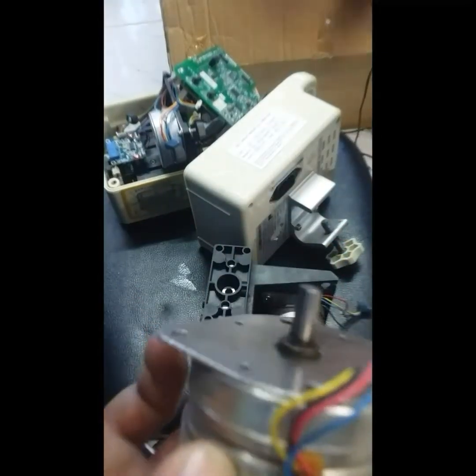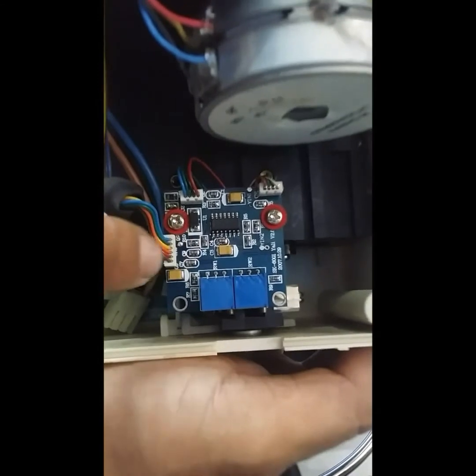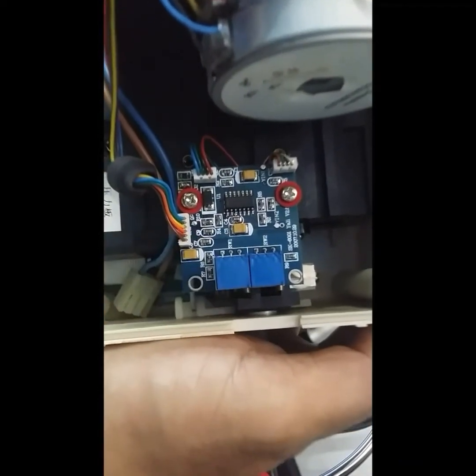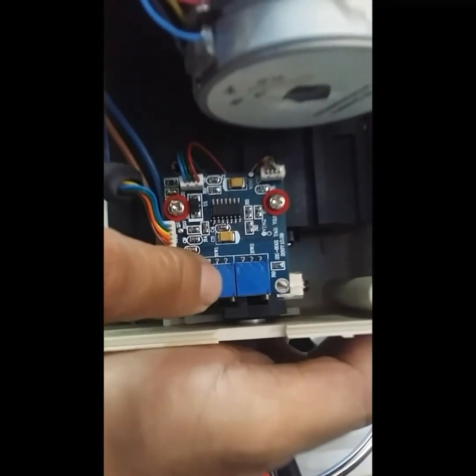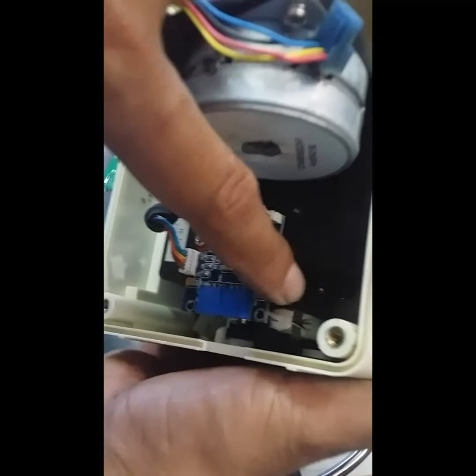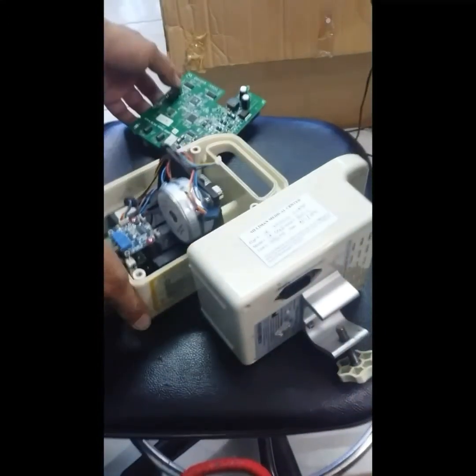This is what you call a stepper motor. We have here a sensor source board with the connections, and these two variable resistors — we're going to twist the knob back and forth and then put it back to its proper position. Be very careful, because this is critical hospital equipment and it must be calibrated.